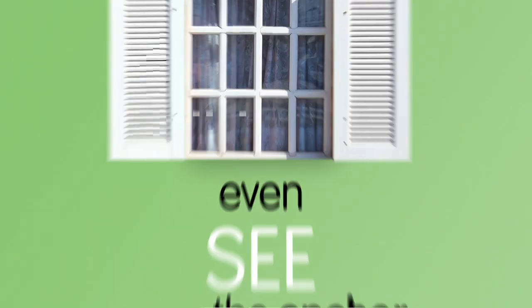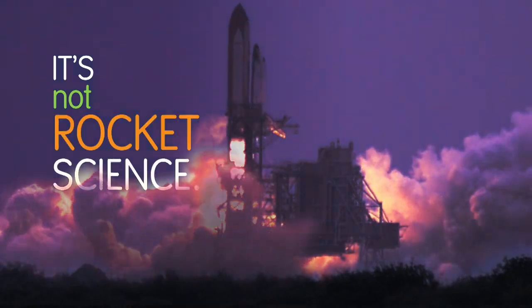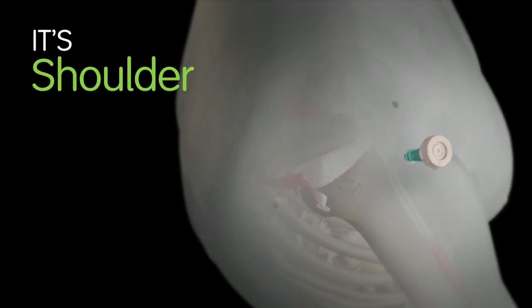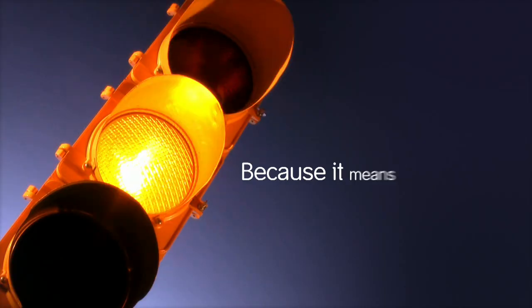You can even see the anchor through two windows in the drill guide. It's not rocket science. It's better than that. It's shoulder repair science. And it's music to your ears because it means you're good to go.